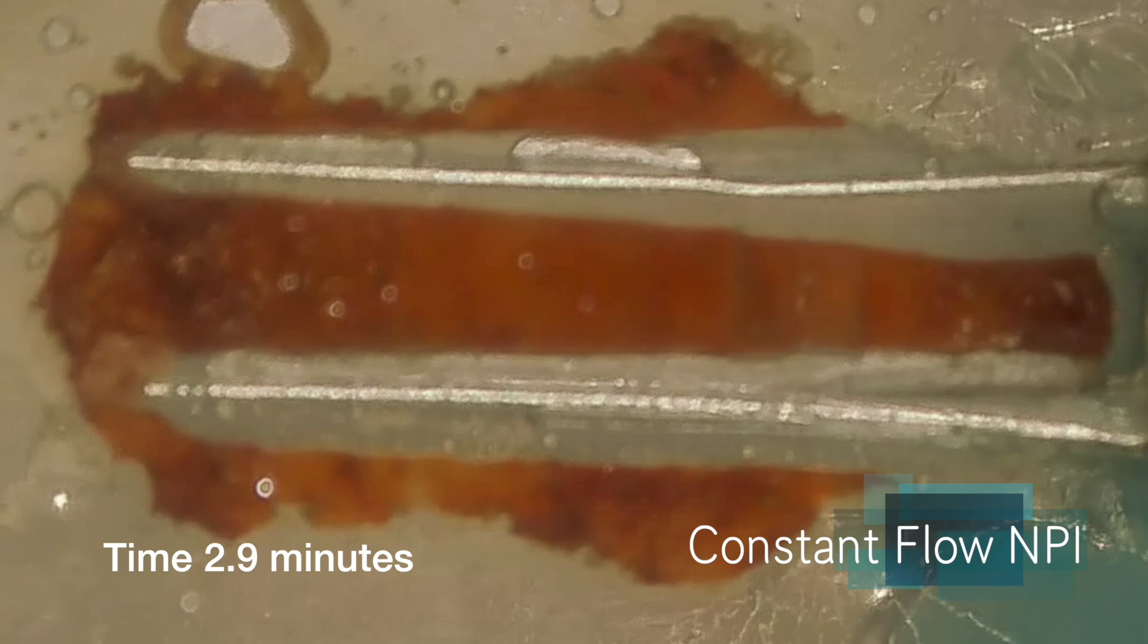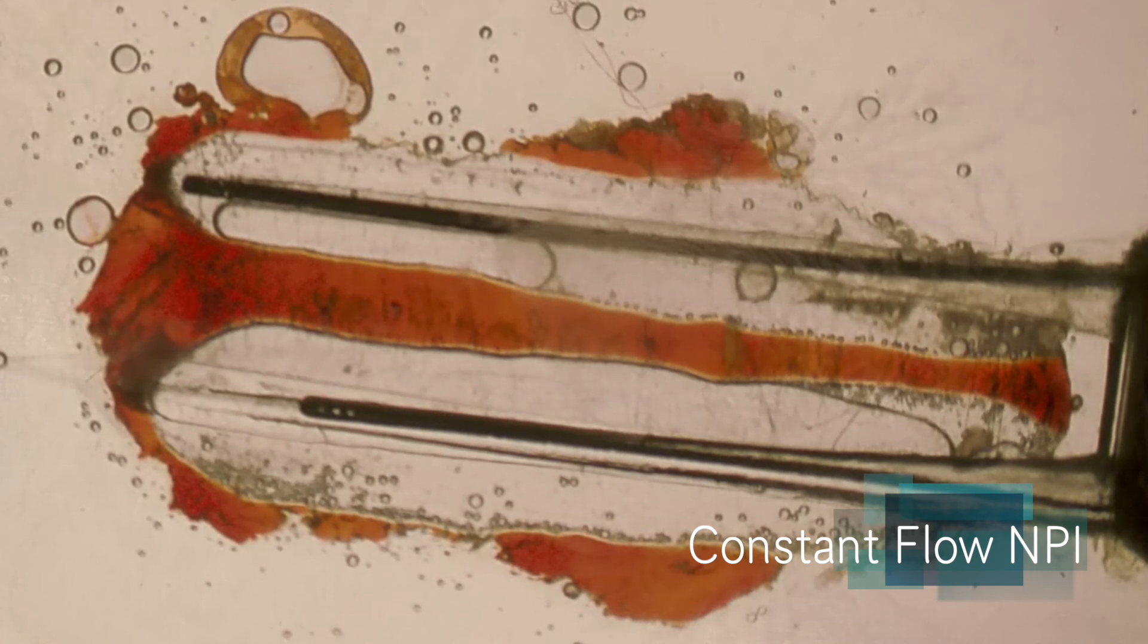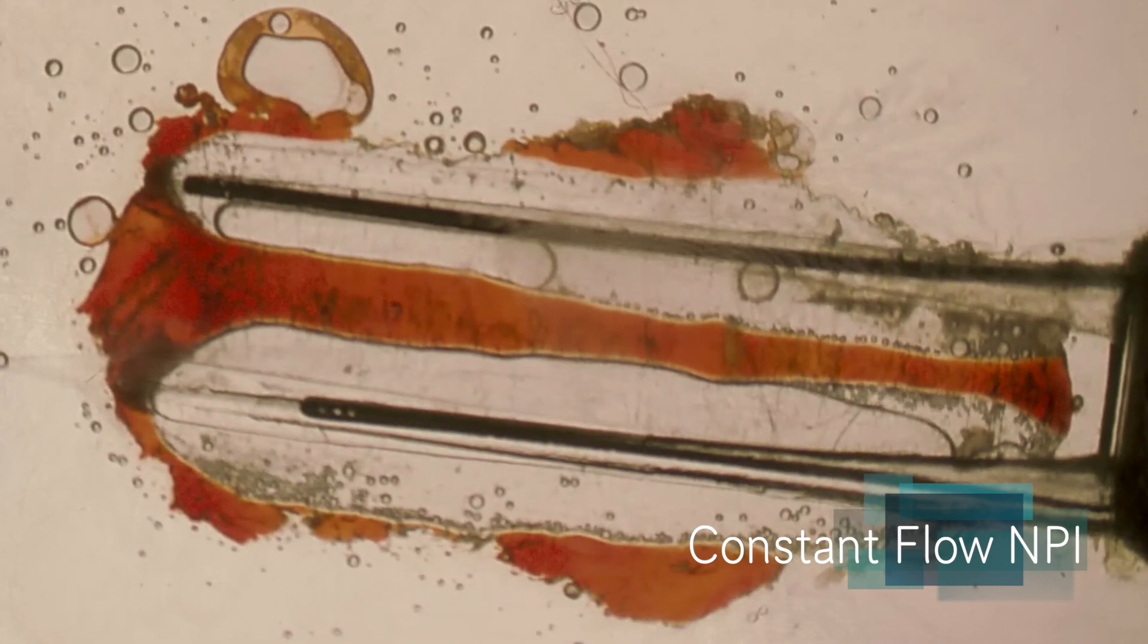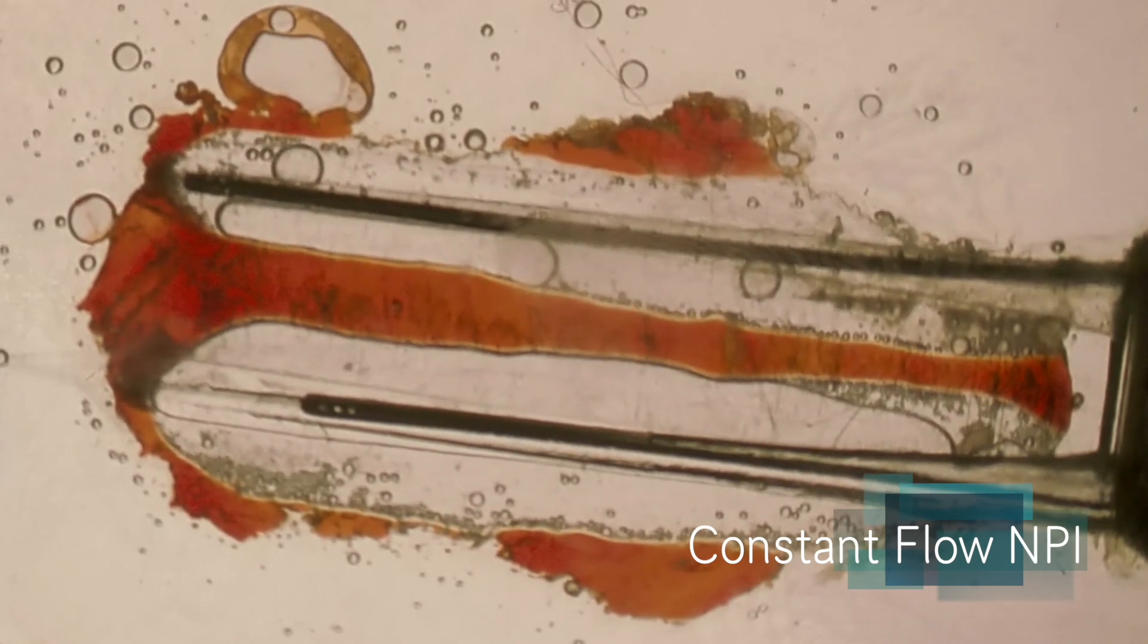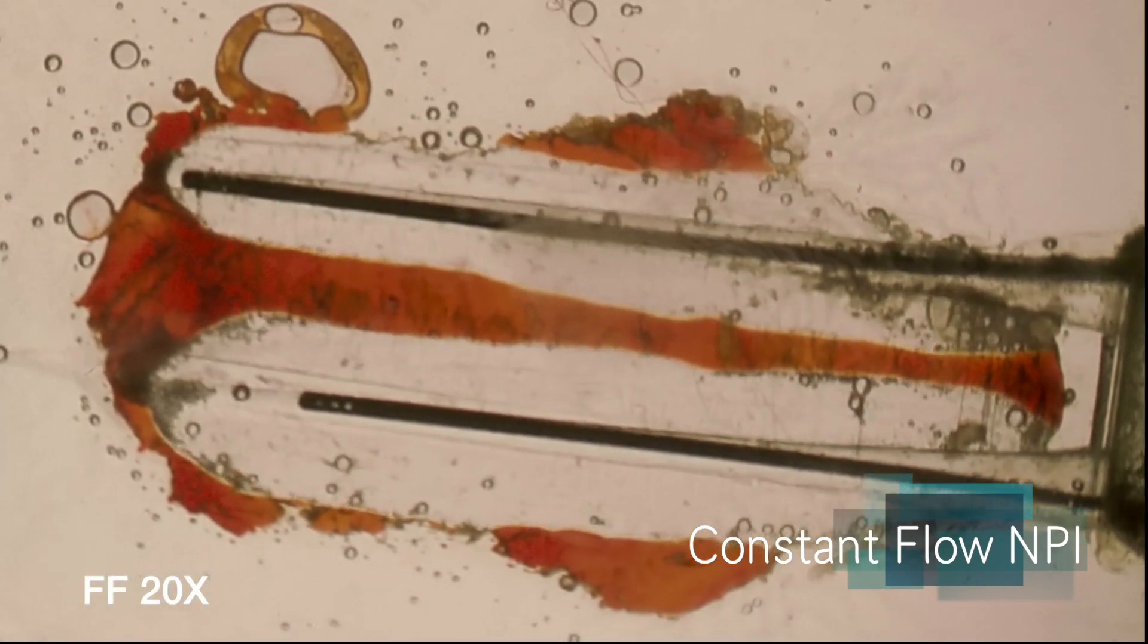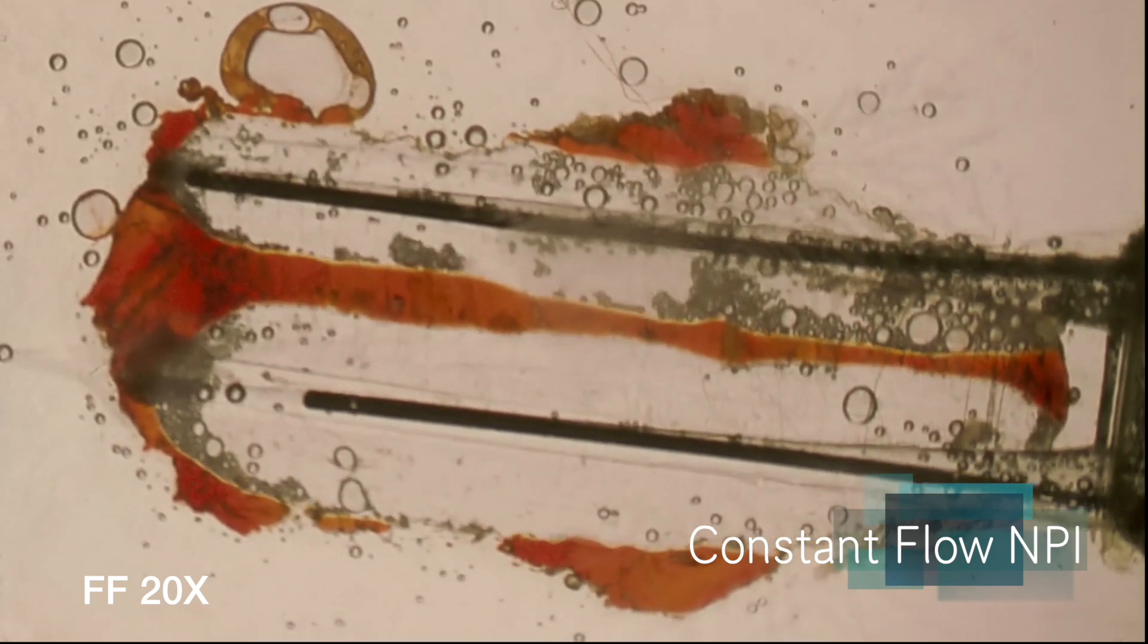So I had to blow air through the little micro-cannules to blow out any obstruction that must have collected in there. Improved the backlighting. And so now we're going to watch it at 20x to prevent severe boredom. Keep your eye on the tissue in the isthmus area as it's melting away.